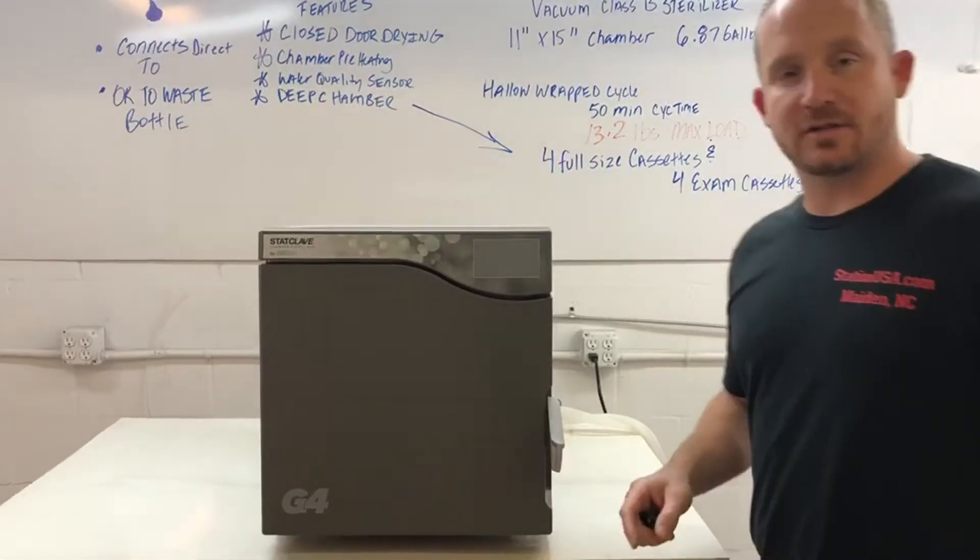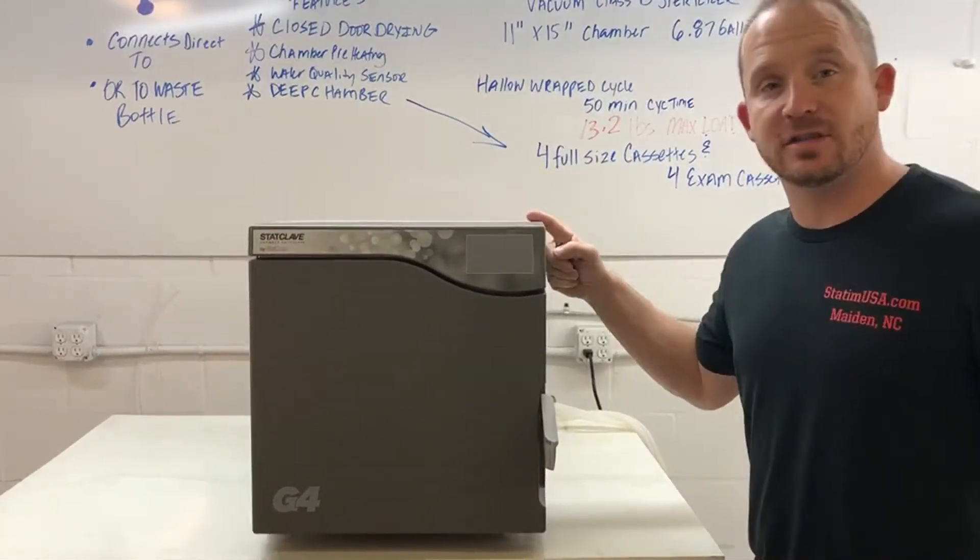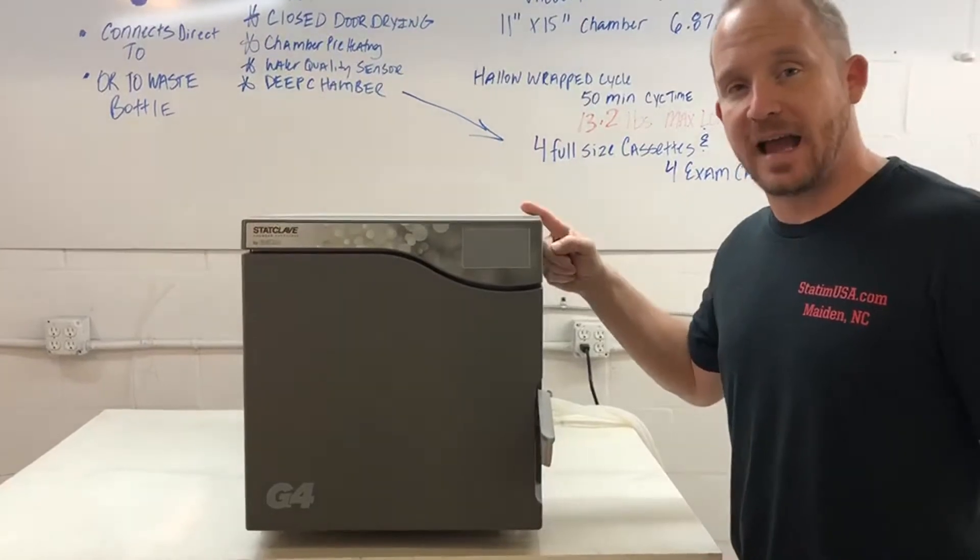Andrew again, Sterilizer AutoClave Solutions, talking about how to set up and install your G4 StatClave.